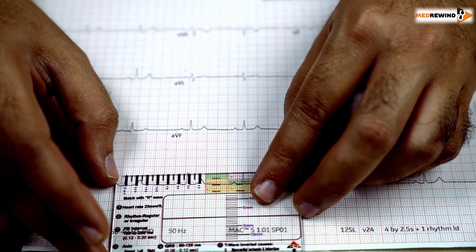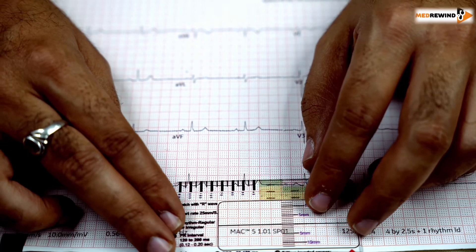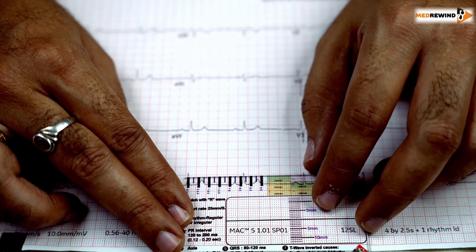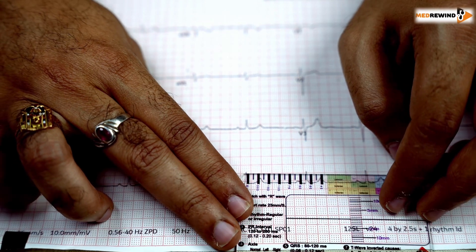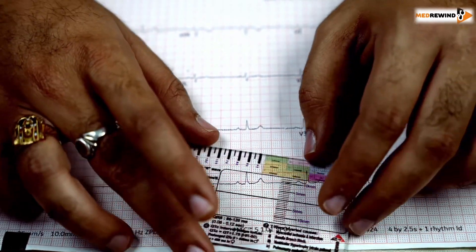Step 2 is to assess whether the rhythm is regular or not. Again you match it and see that it's in the same place or not. Almost the rhythm is regular. Coming to the third step.